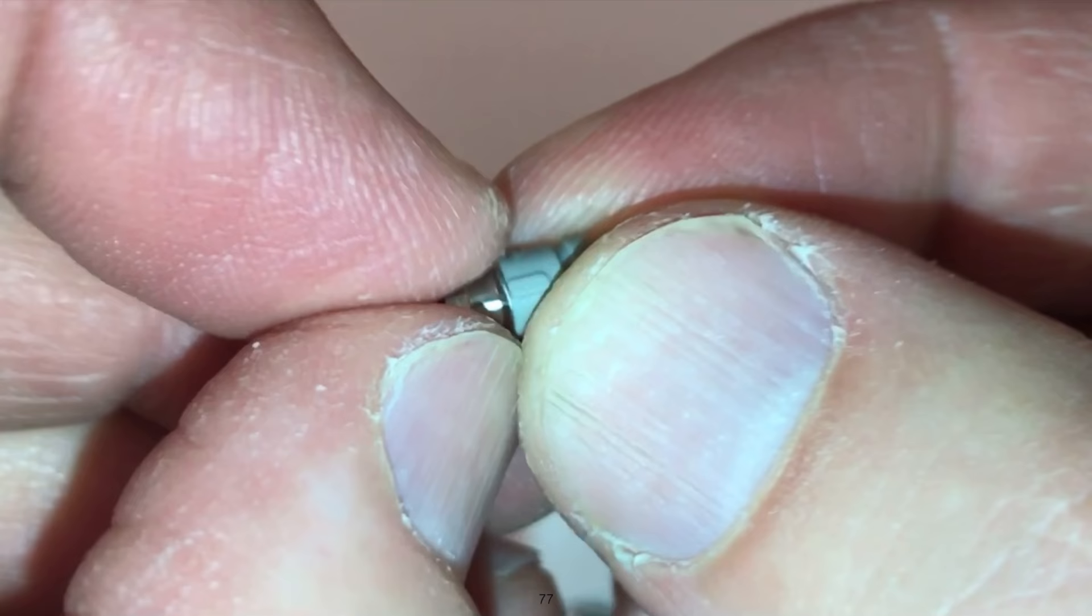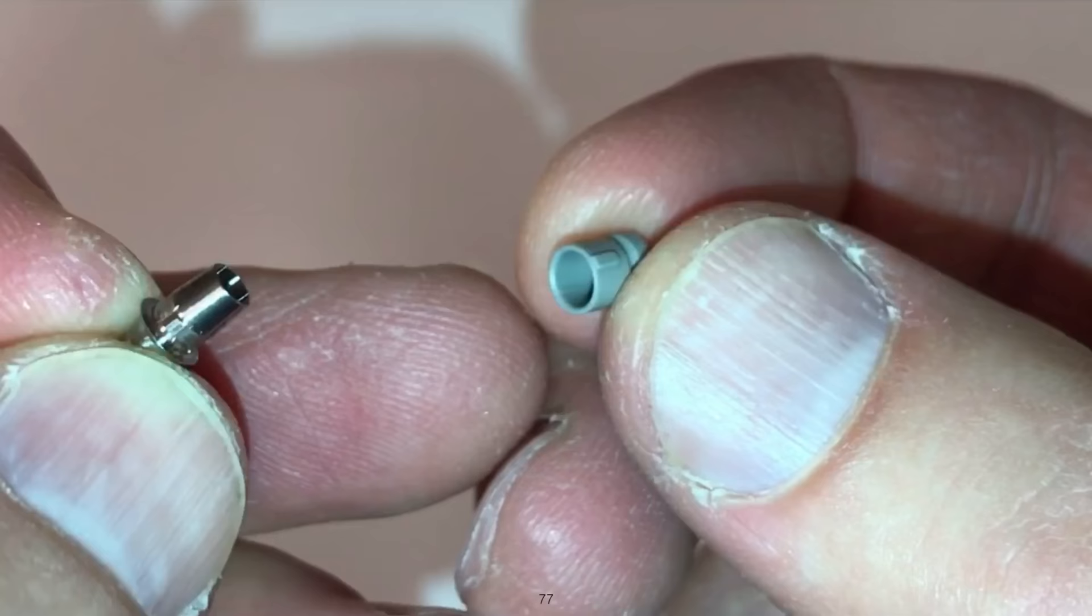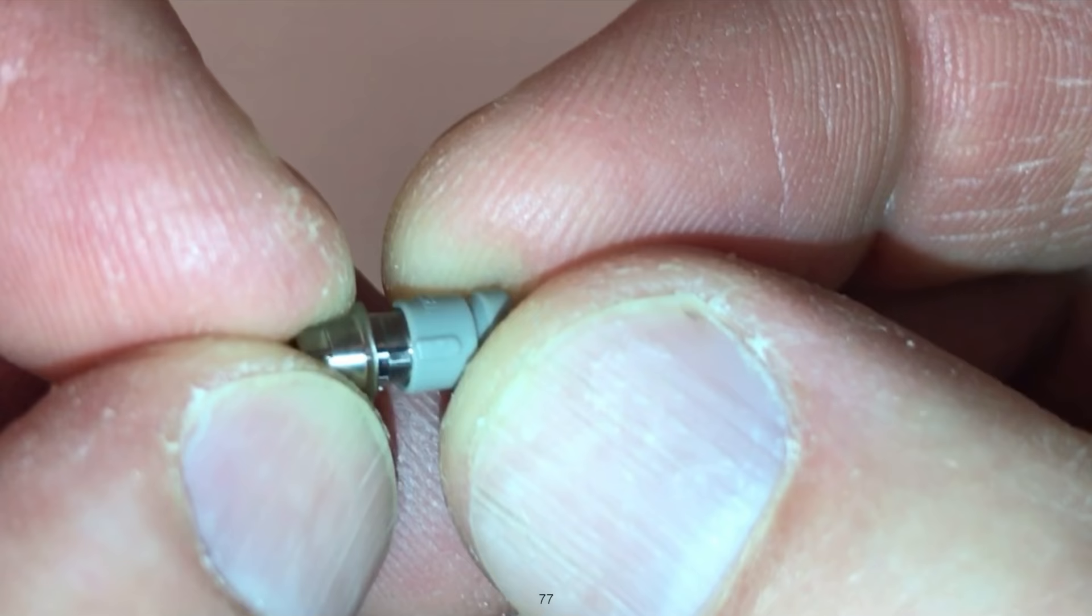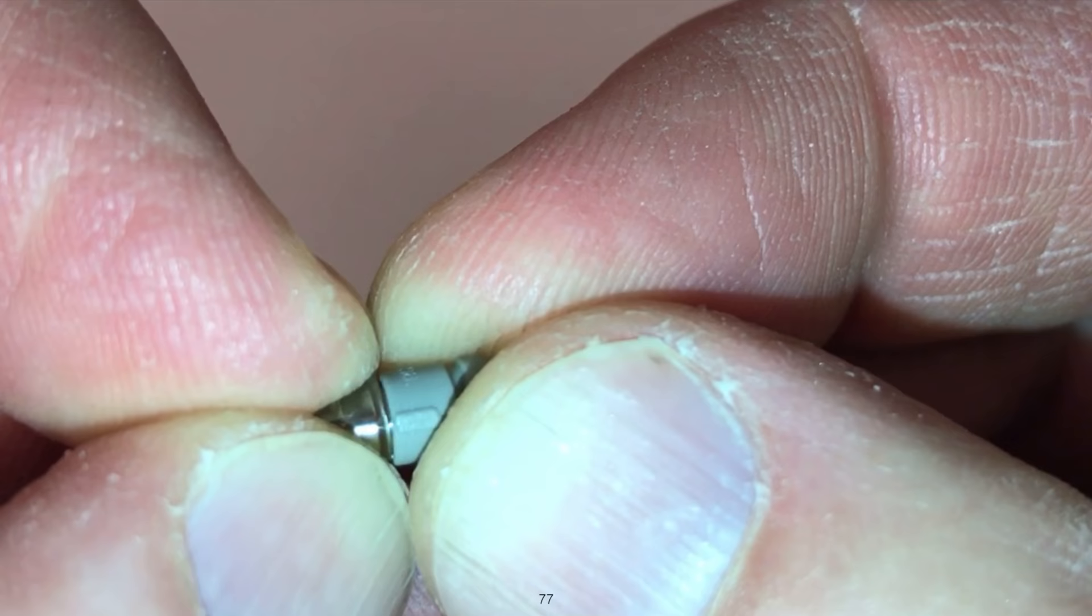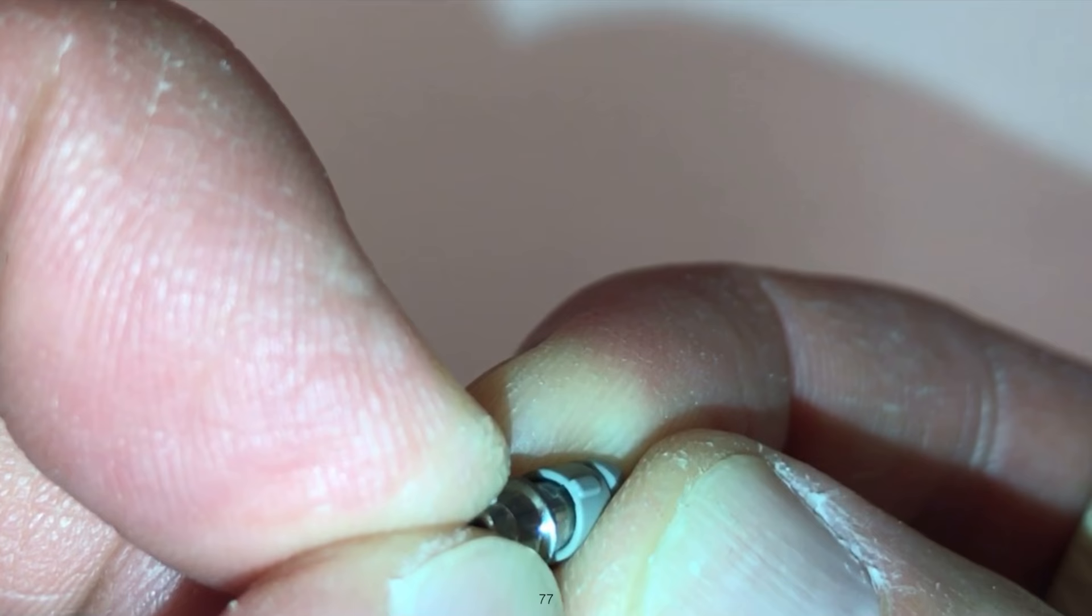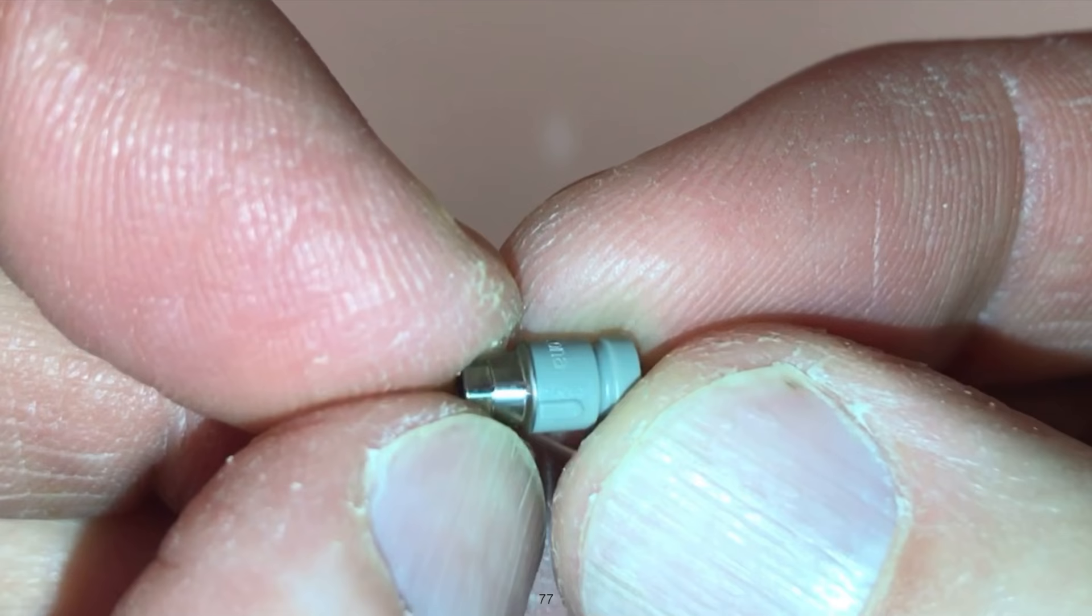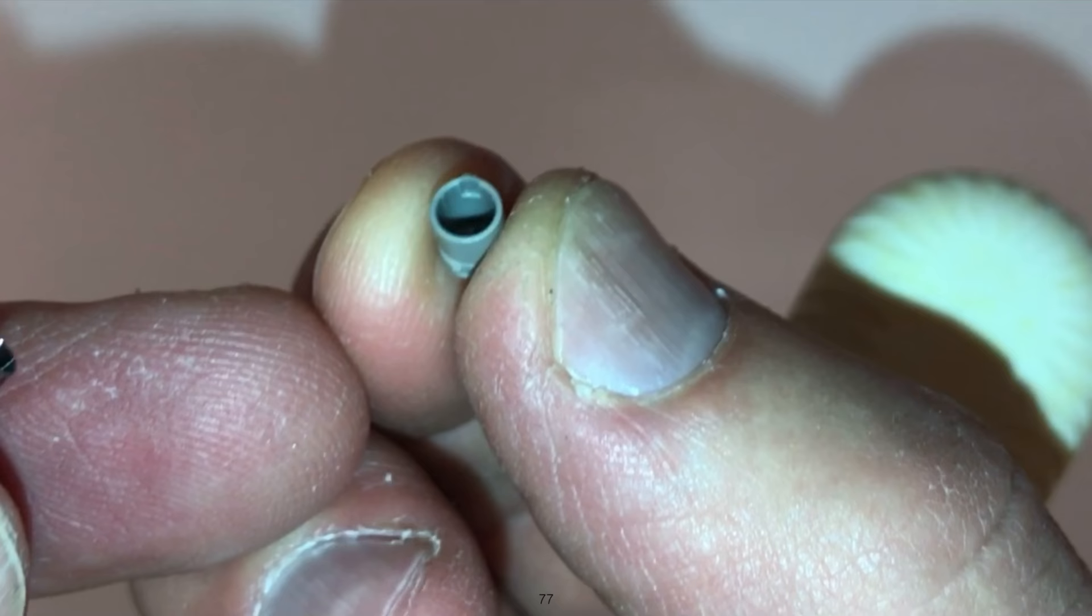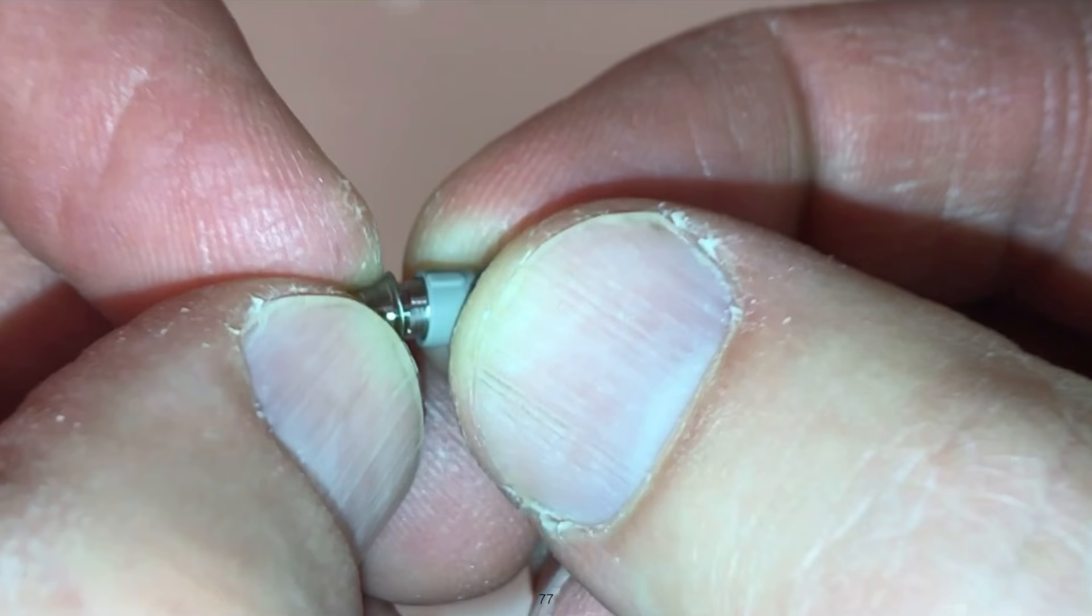But those pieces should go together without impinging. Notice that I can put that on, I can cross thread it so to speak, I can force it in a way that will not be correct. The problem is it's plastic and if it's not lined up correctly and I push too hard, it's going to force through the plastic. The plastic will bend and it'll slide down. I would suggest when you first start doing this, make sure that you try it a couple times outside the patient's mouth so that you can feel what that insertion feels like, where that groove and the notch come together.